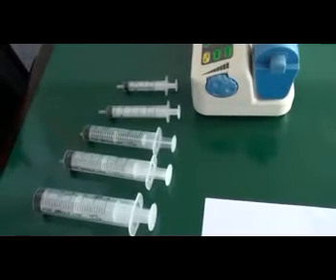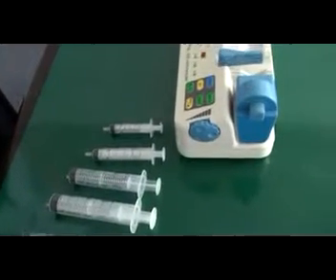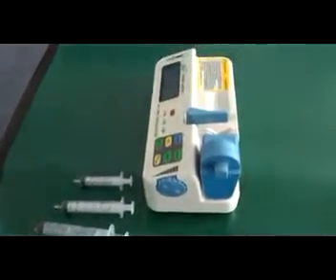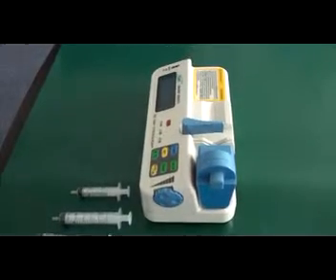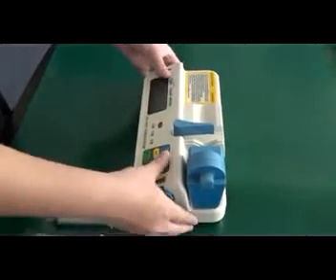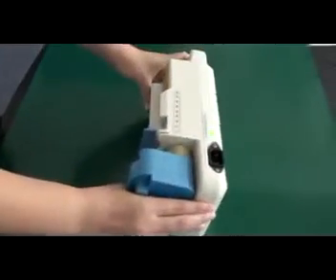Step 2: Measure the length of the syringes. You may use a ruler or use the scale on the side of the pump to measure the length of the syringes.